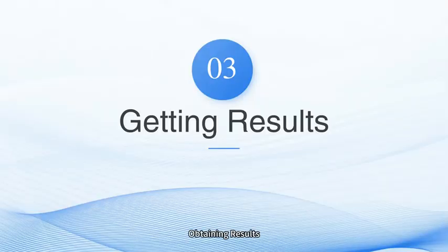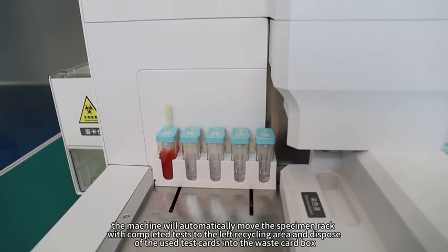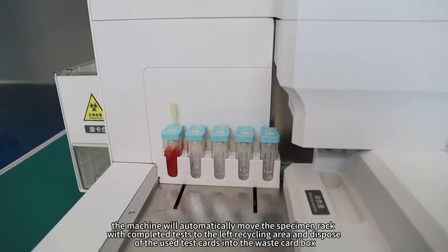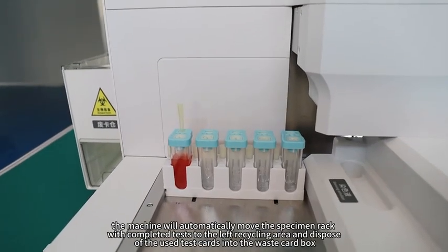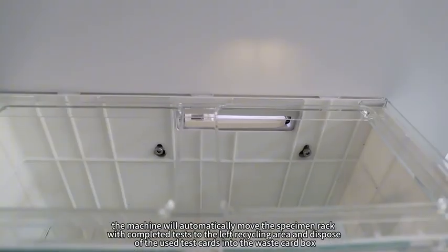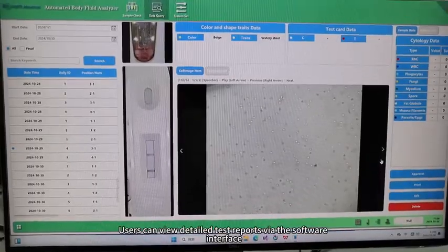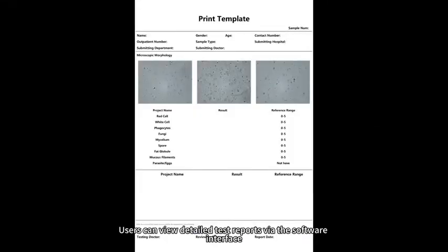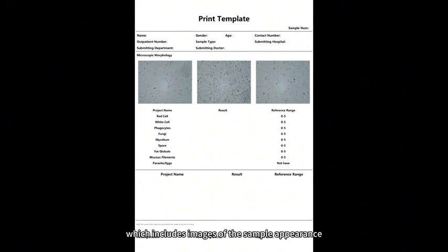Obtaining Results: Once testing is complete, the machine will automatically move the specimen rack with completed tests to the left recycling area and dispose of used test cards into the waste card box. Users can view detailed test reports via the software interface, which includes images of the sample appearance, test card images, microscopic observation pictures, and final analysis results.